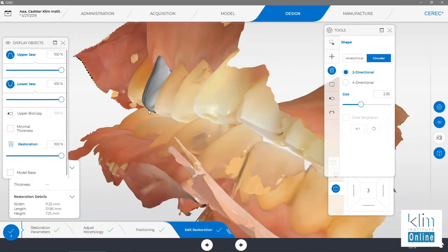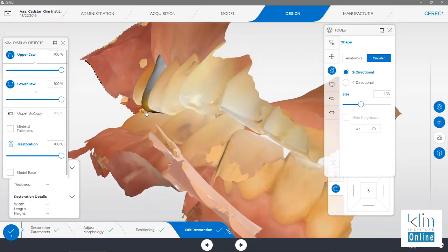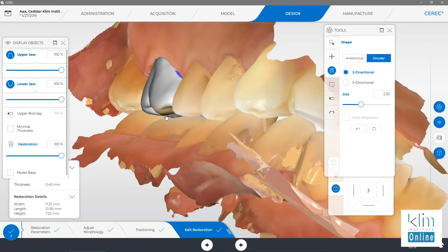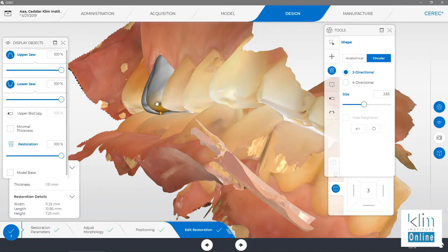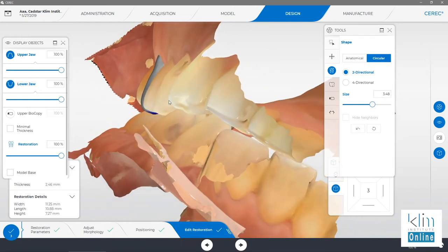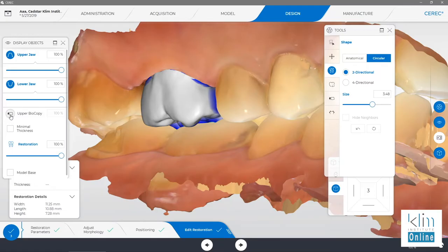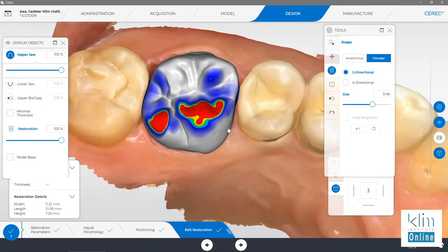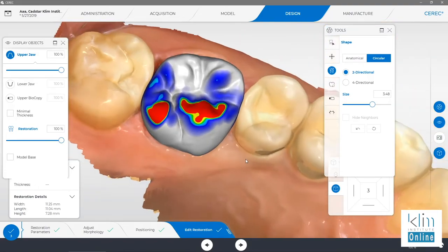Observe where the arrow is placed — when the arrow is on cusps, it will take that cusp out to the buccal a little bit. Most of the time what we're going to do is catch the lingual side of that triangular ridge on the cusp, and that will protect the shape of the buccal cusp in alignment with the arch. Grab the triangular ridge, the arrow will go slightly lingual, and that's the best way I've found to bring those cusps down. The last step to make sure the tooth fits the arch is to close the interproximal contacts. Let's bring the distal marginal ridge up just a tad — it's even with the adjacent marginal ridge. And now the restoration fits the arch.